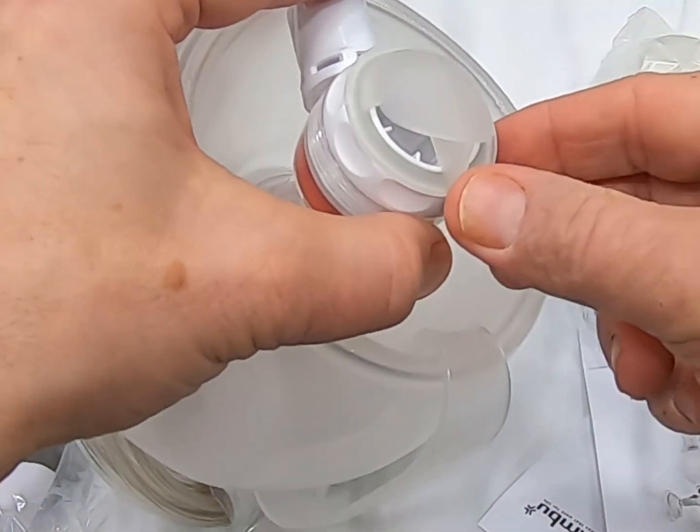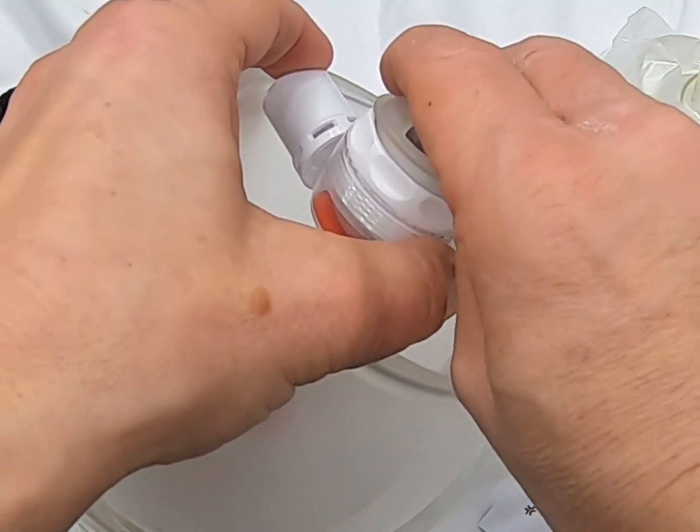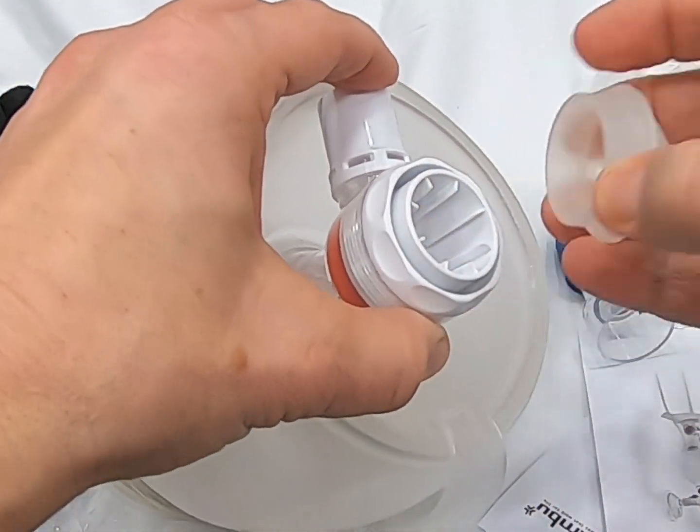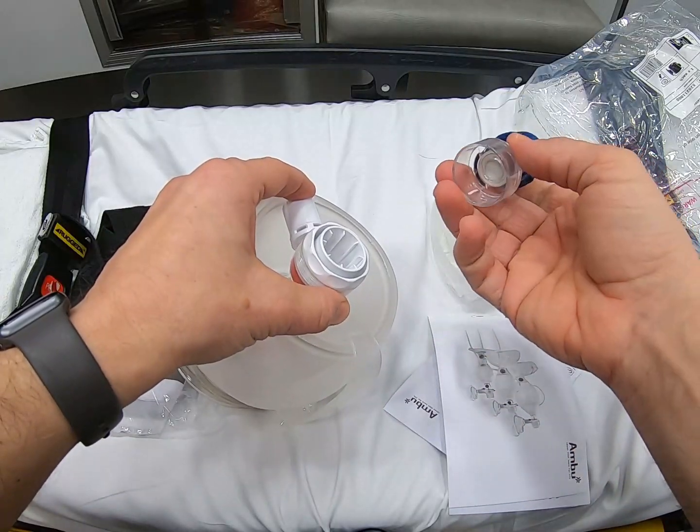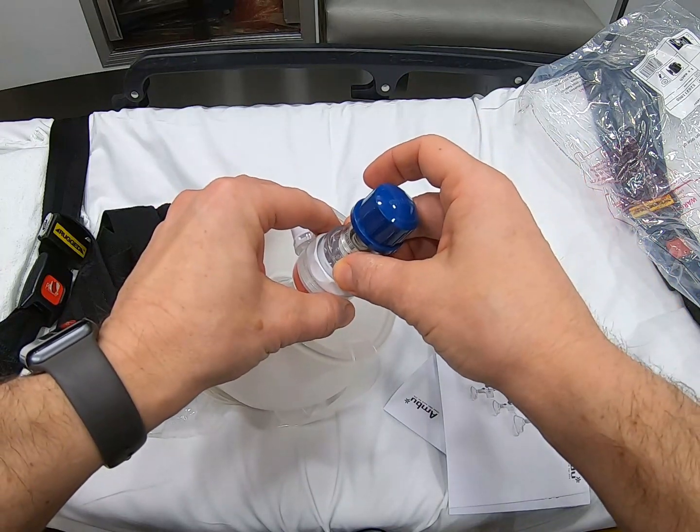We're going to pop this part off. It's not taking the whole thing off, just take this portion off. This is going to connect in.